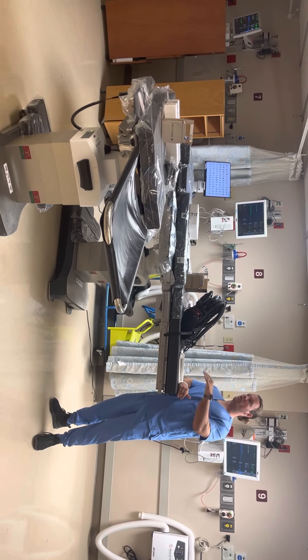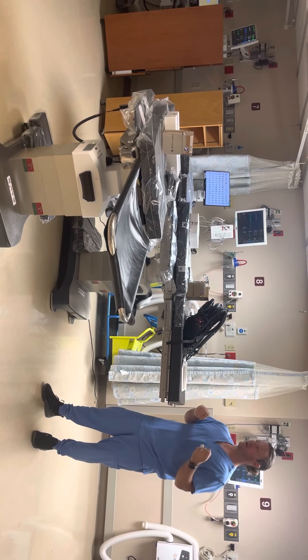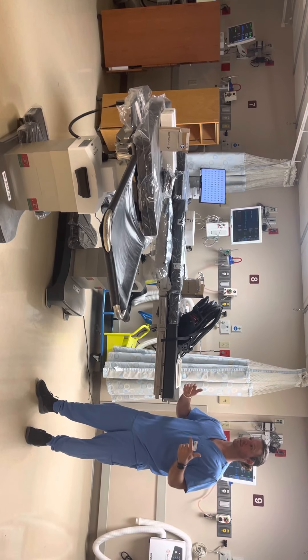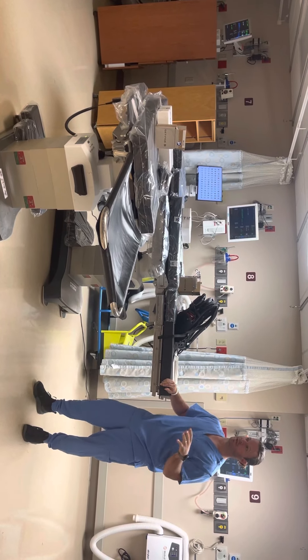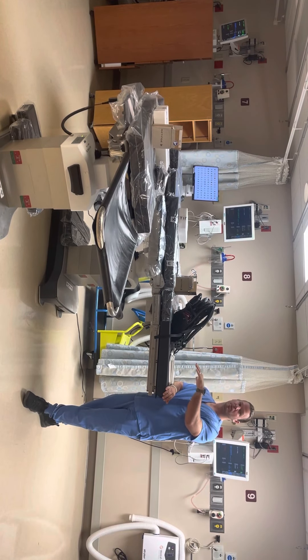A quick little overview of what we're going to be doing: we're going to go over your techs and specs — basically just what the table is capable of — how to use it as far as the controls and especially the remote. I'm going to make sure you guys are comfortable with the accessory pieces. Some of this will be redundant. And then lastly, batteries, accessory pieces, anything else you may be putting onto the table.